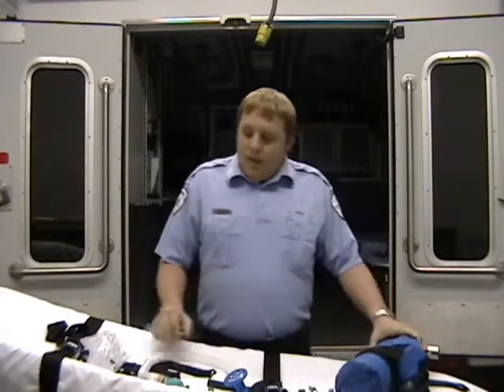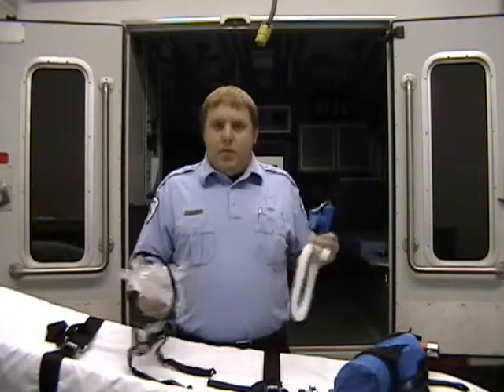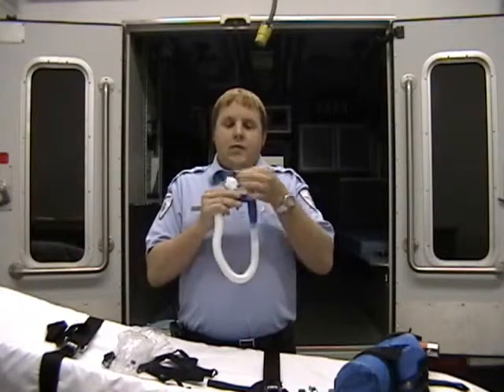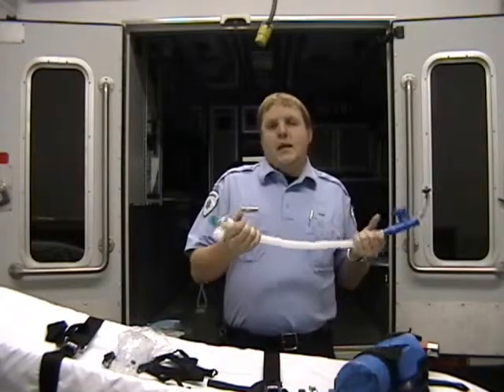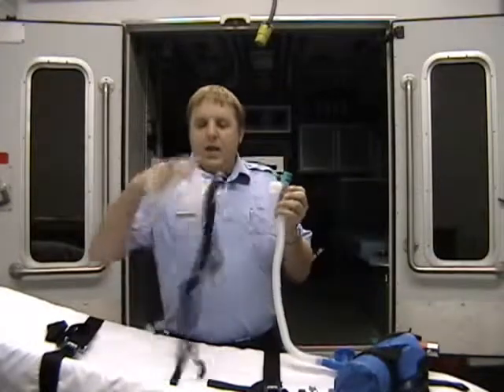How to set up the CPAP? CPAP is pre-packaged, one-time use, disposable. It is single patient use. It comes with an air mixing valve to mix the oxygen and the air after it's being filtered, a convoluted tube to connect the system together, PEEP valve, and face mask and head strap assembly.